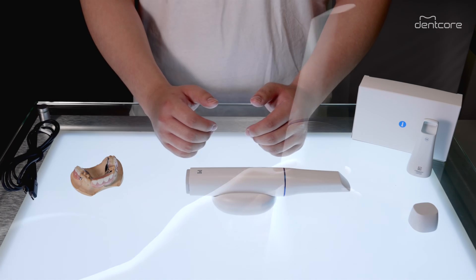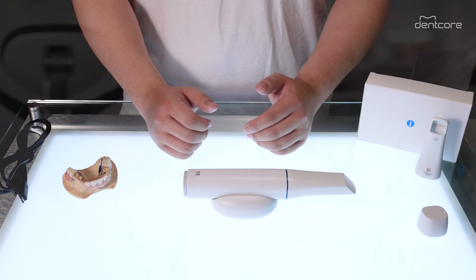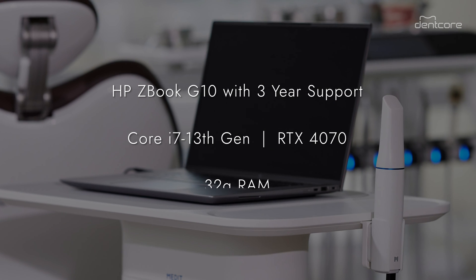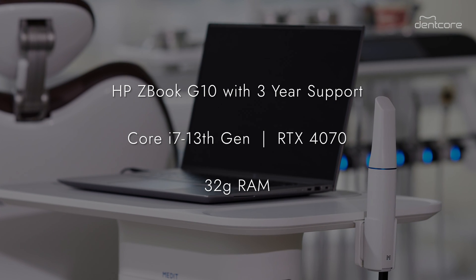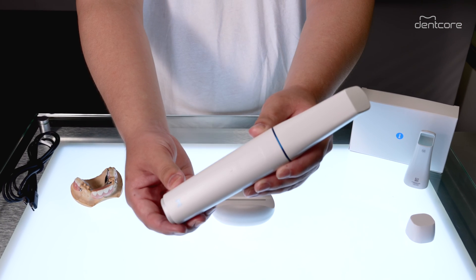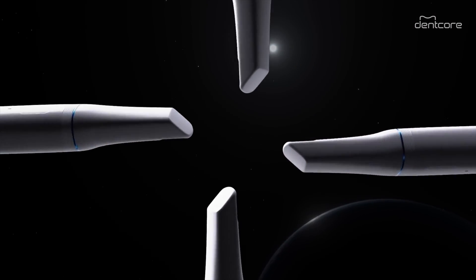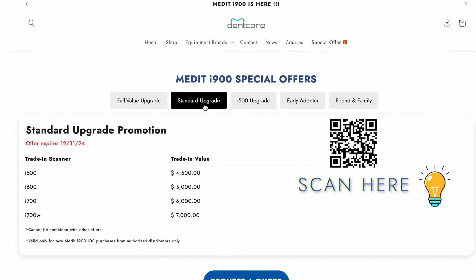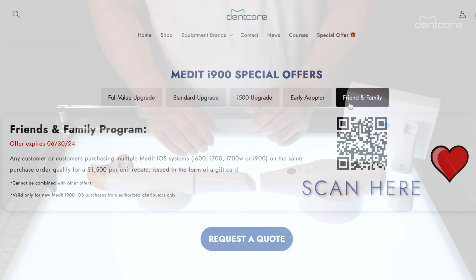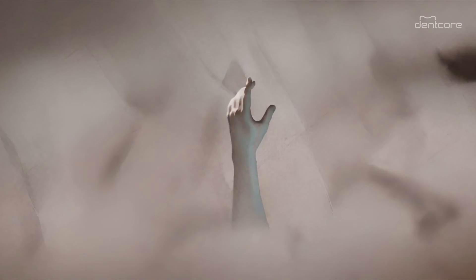Along with your purchase of the i900, you'll also receive a comprehensive three-year warranty with a pre-configured 13th gen Core i7 HP ZBook G10 laptop with an RTX 4070 and 32GB of RAM, which also comes with three-year support. The scanner also comes with Medit's unlimited drop protection, so your investment is protected. Medit has already announced trade-in promotions for existing Medit scanner owners, as well as an early adopter promotion — so whether you're an existing Medit user or a provider seeking to upgrade your practice, the Medit i900 has something for everyone.